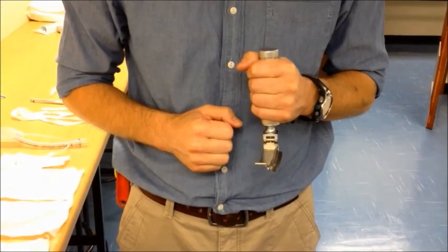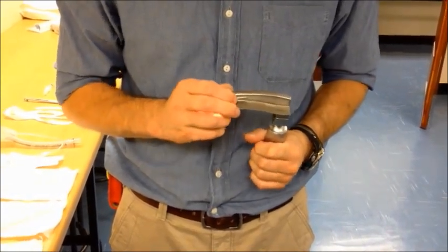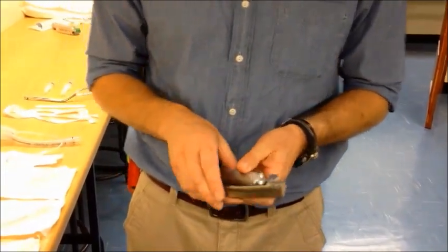Make sure that there's no jiggle or free play in the blade and ensure that the bulb itself is tightly screwed in and not jiggling about. Your laryngoscope is now checked and ready for use.